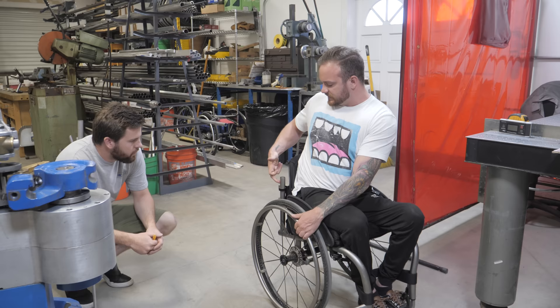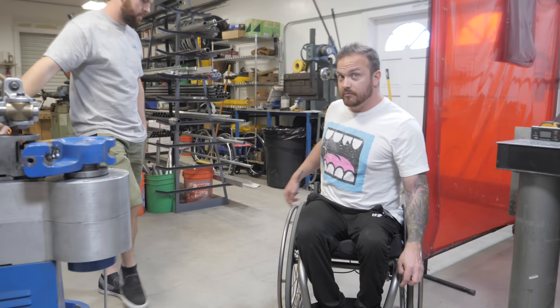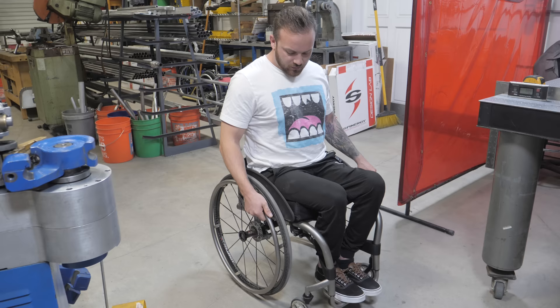When I do push back, these poles go into my back because I'm a wider guy. This angle was poorly chosen. I could throw this back a good inch and be really comfortable except that these would be stabbing me. I like to be deep in back, but currently I feel like I'm sitting hunched. All in all, the chair itself is not bad — it's just all these little things I feel could be more precise and more optimal.